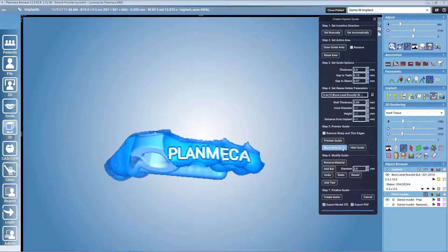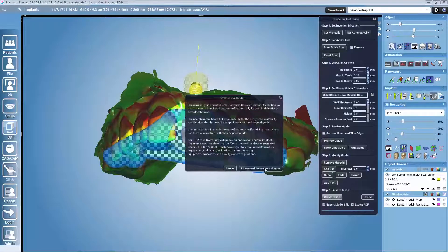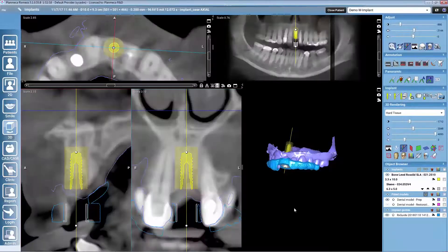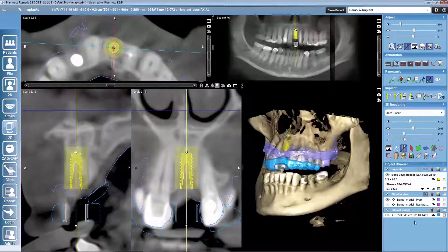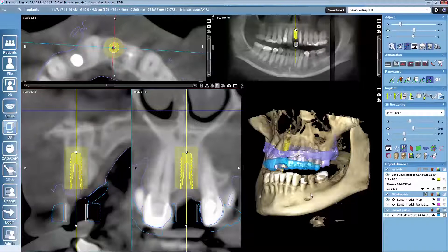Once we are ready, we create the actual guide and Romexis will generate the STL file. It will also be exported at the same time to your selected location, and you will be able to create an implant report as well. After creating the guide, it will be visible in the patient data alongside all other patient data and can be managed from the object browser. From there, you simply bring it to any 3D printer and print it with surgical guide compatible material — that easy to create your own guides locally.